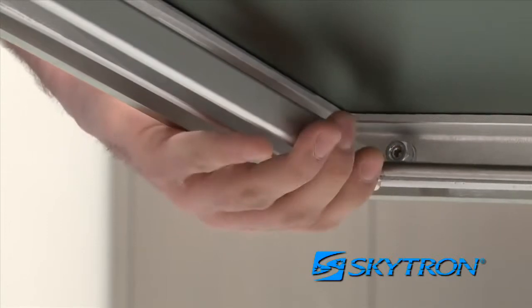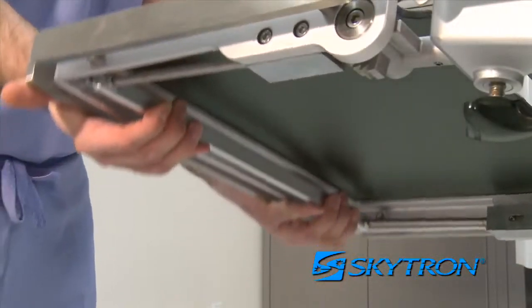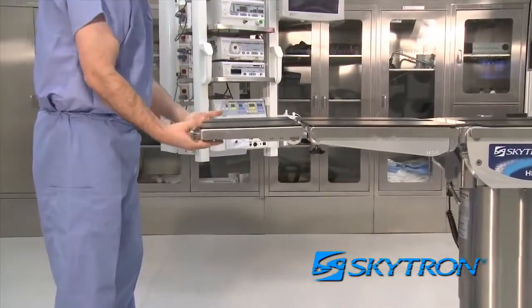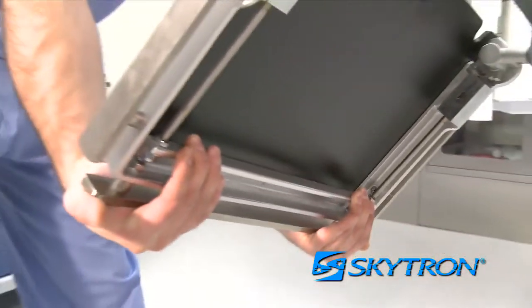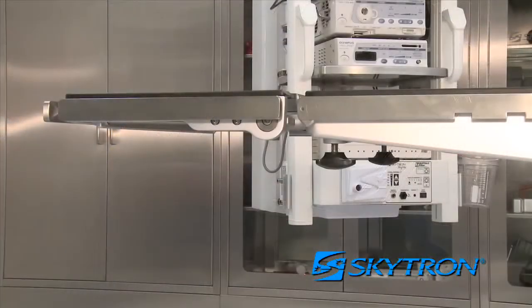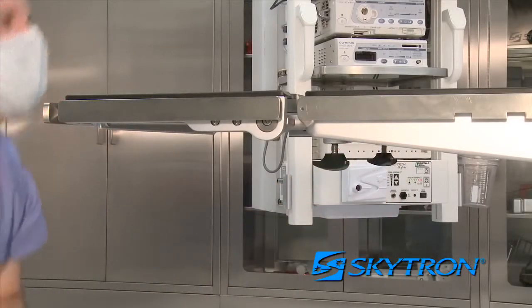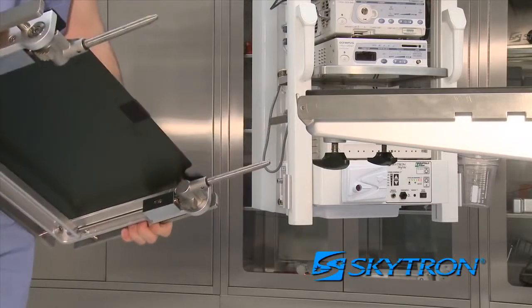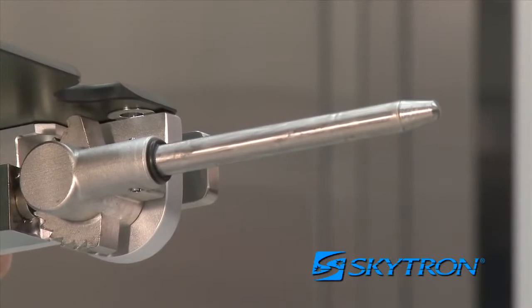The head section is equipped with a quick-release positioning bar located under the front of the head section. Pulling back on the release bar will allow the section to pivot up 60 degrees or down 90 degrees in 15-degree increments. Simply release the bar to lock the head section in place. The head section can also be removed by loosening a pair of locking knobs — rotating each counter-clockwise — then pulling it backward off the back section. Head section pins are approximately 6 inches long.